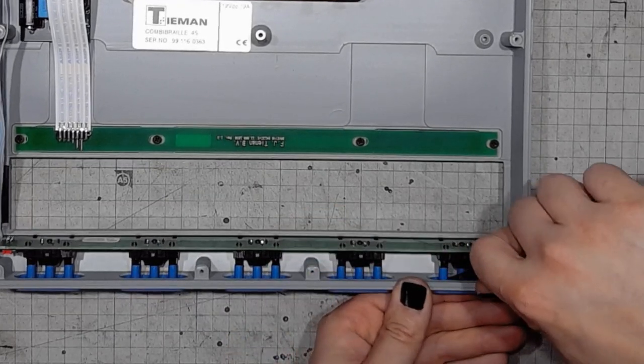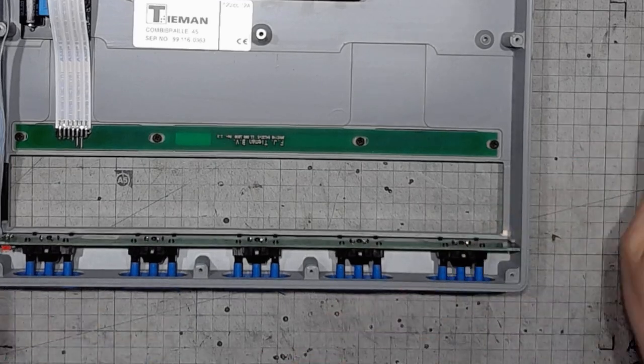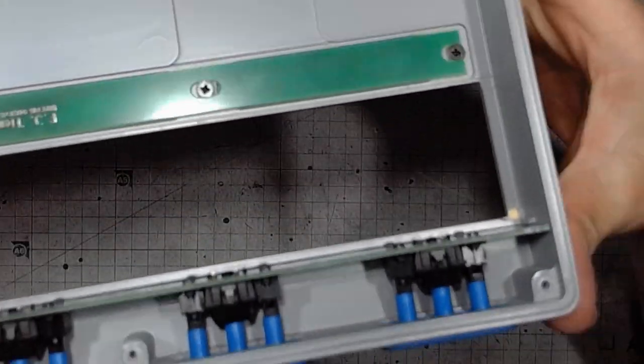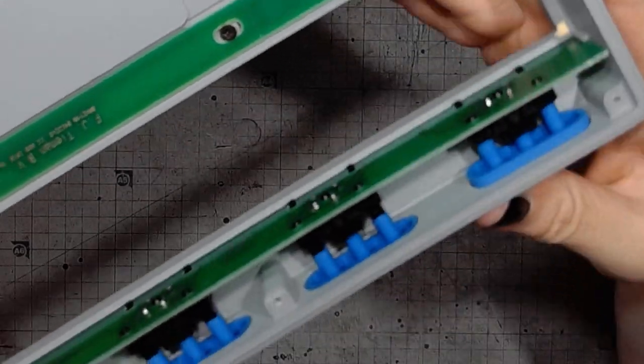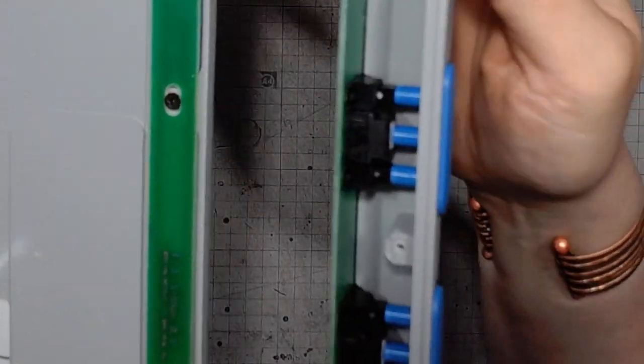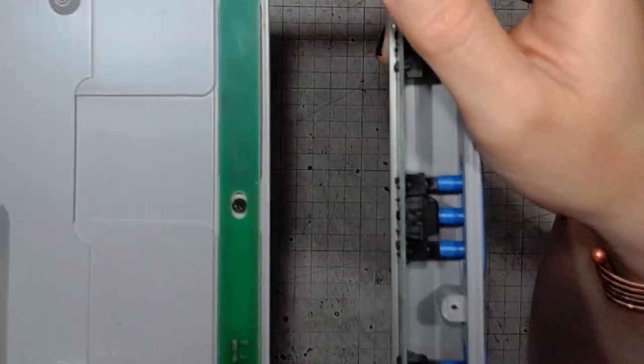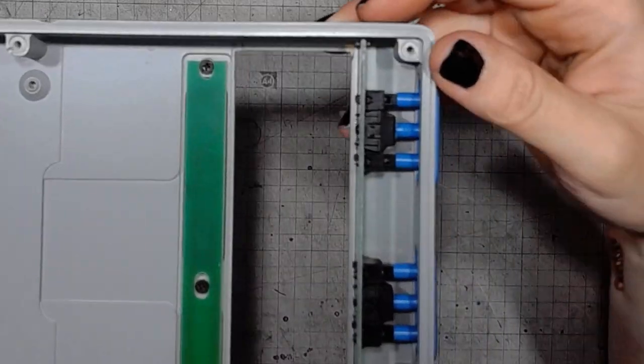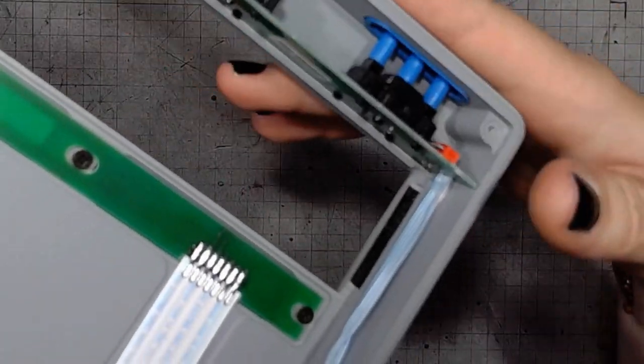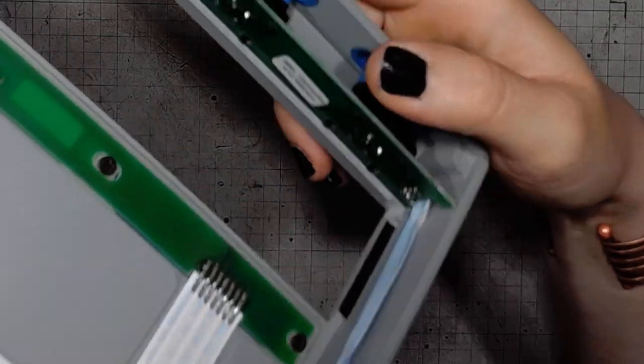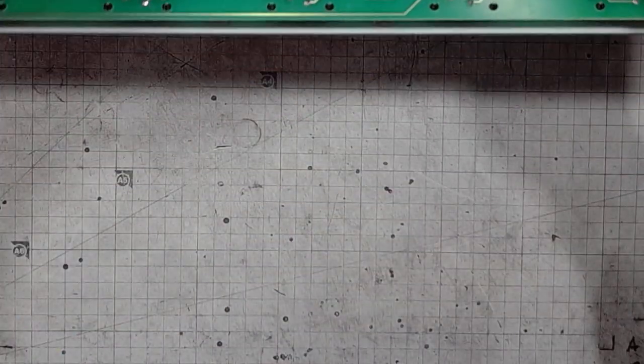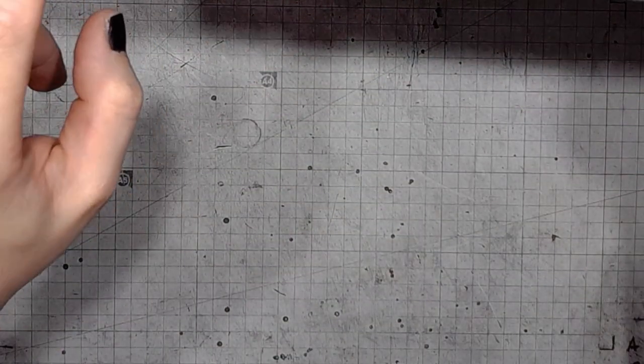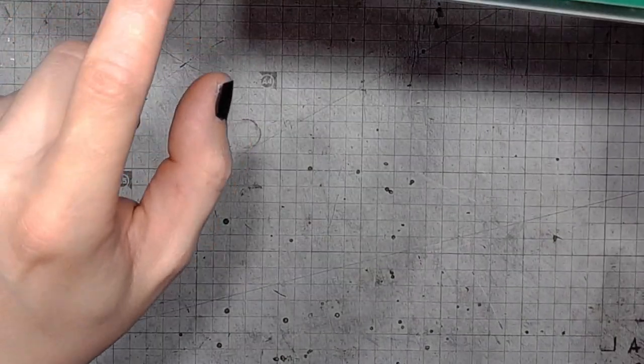Again, I don't want to destructively discombobulate this device, but if it doesn't want to go, then I will not try to pry it out. Look at that, it has a sticker: Visual, okay. September 1999. So the quality control sticker is from 1999.